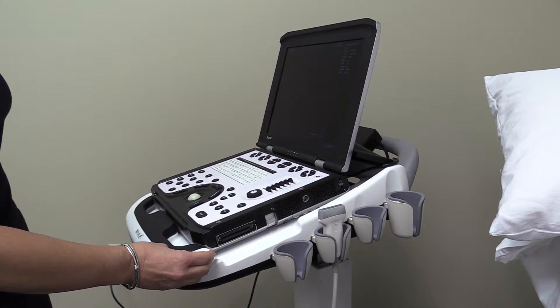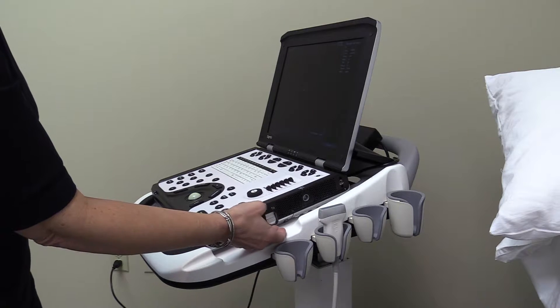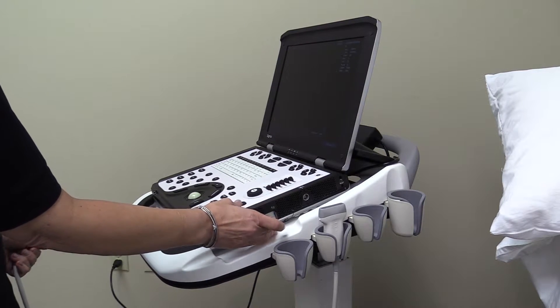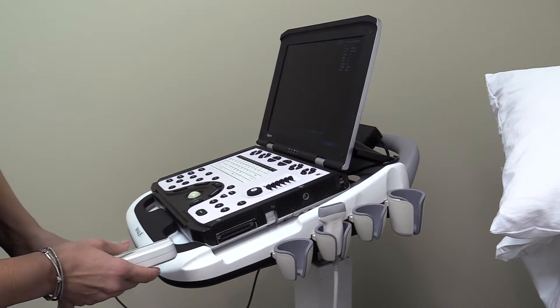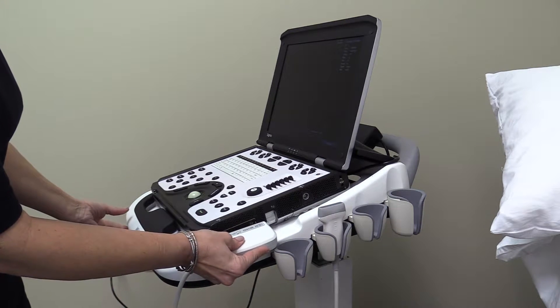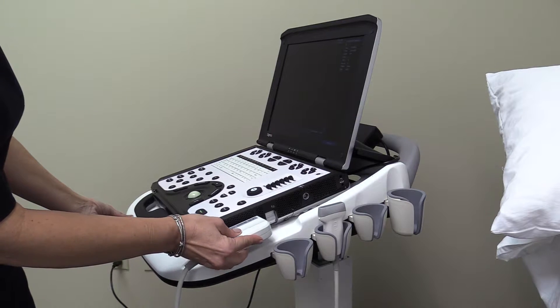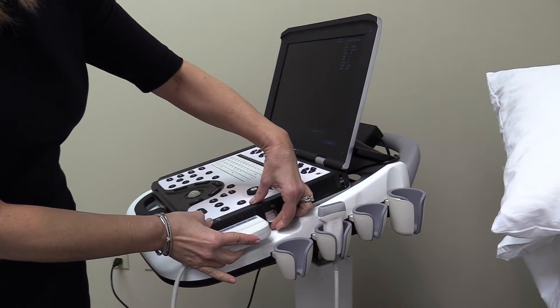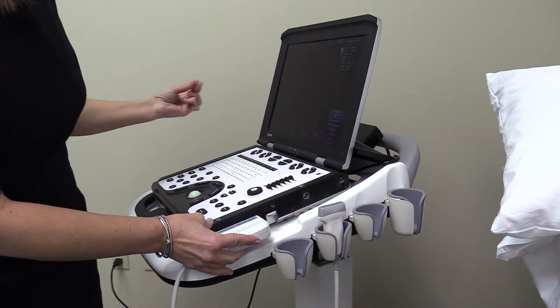Probes can be connected or exchanged at any time, even if the system is powered off. Press the probe connector locking lever downwards, located on the side of the ultrasound system. Align the probe and probe connector, then lift the locking lever to lock into place.